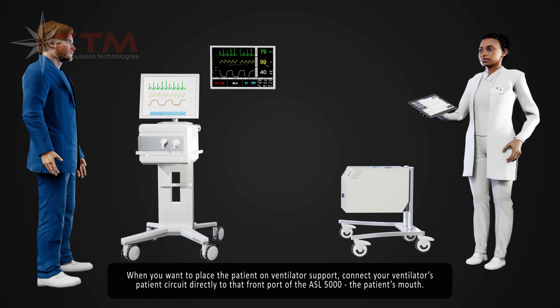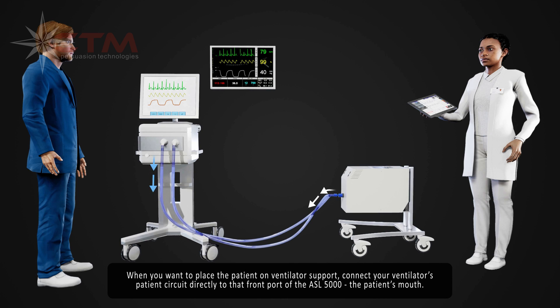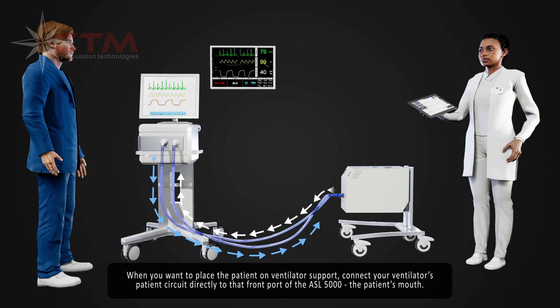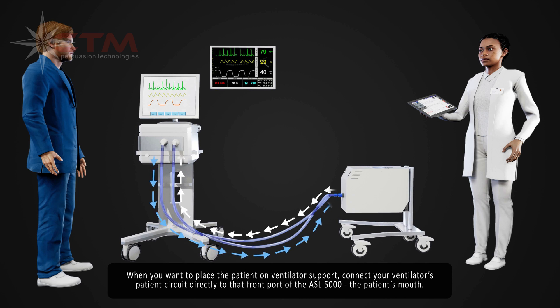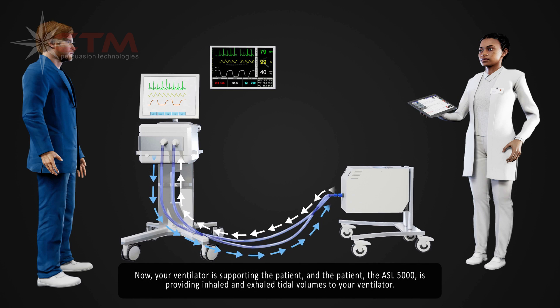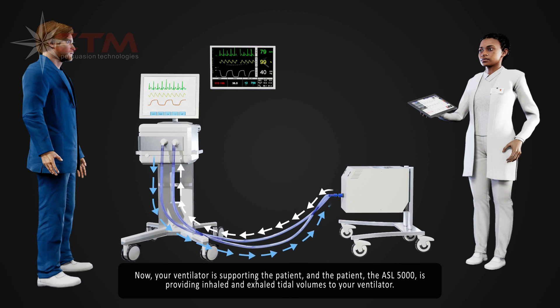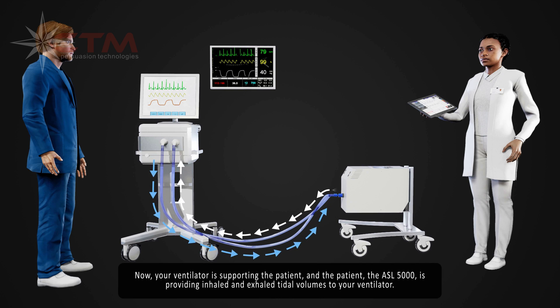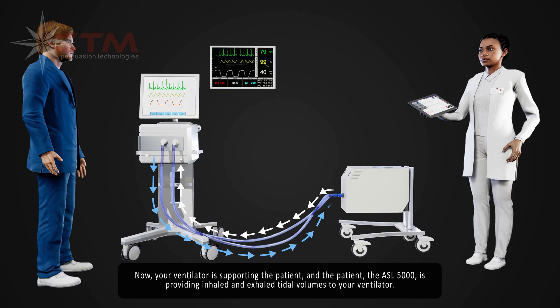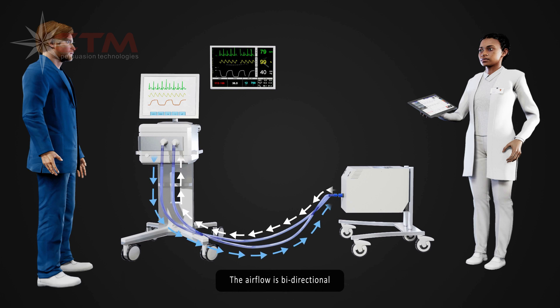When you want to place the patient on ventilator support, connect your ventilator's patient circuit directly to the front port of the ASL5000 — the patient's mouth. Now your ventilator is supporting the patient, and the ASL5000 is providing inhaled and exhaled tidal volumes to your ventilator. The airflow is bi-directional.